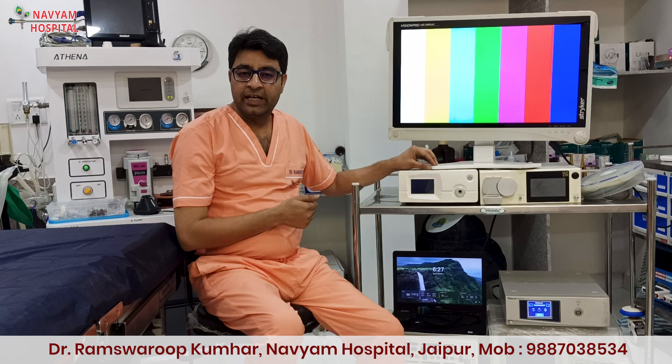So with these machines and some important hand instrument sets, which will not cost you more than one lakh, you can do almost all surgeries. That's how we can manage the whole system as a startup in less than 10 lakhs. So don't worry — these systems are doing very well and I have been using them for 4 years without any difficulty or problem.